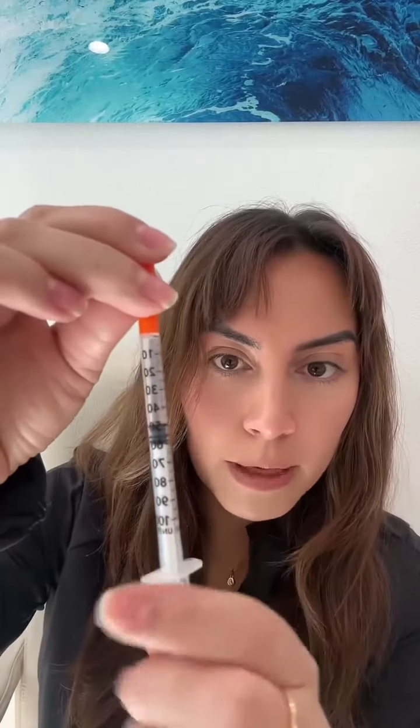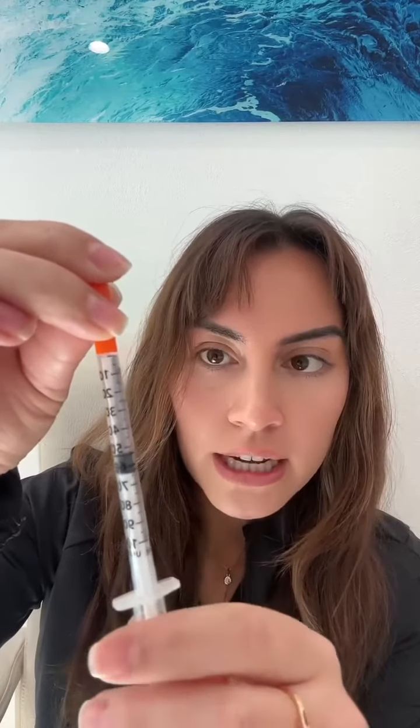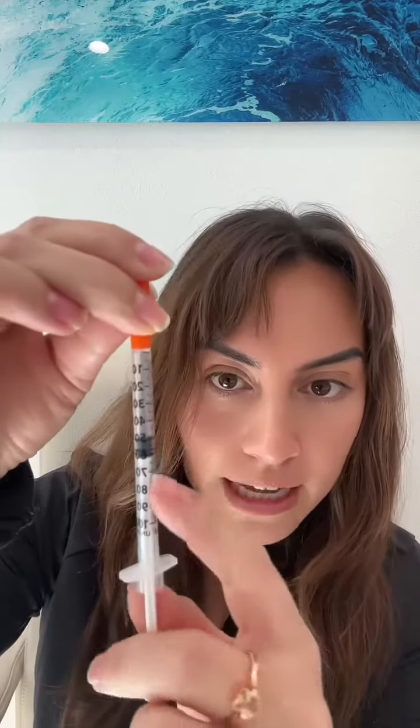It's a very small amount. When you're looking at the syringe, it has 100 units. My plunger right now — which is this black thing moving up and down in the syringe — is at 50 units. That's at 50, and that's way too much.